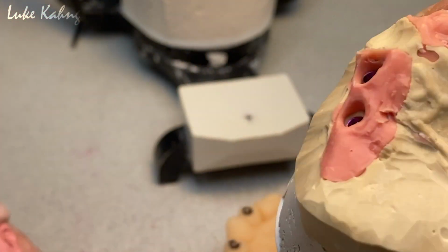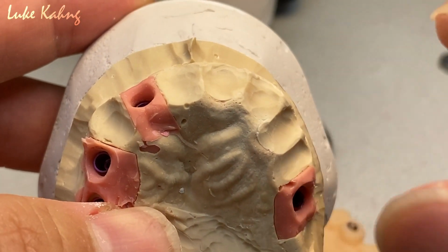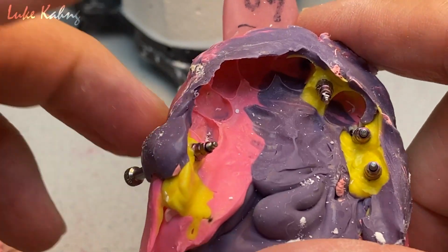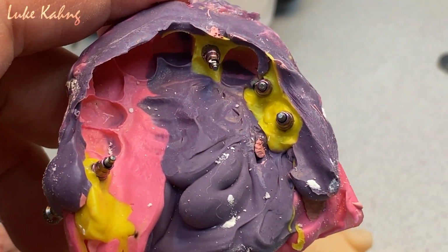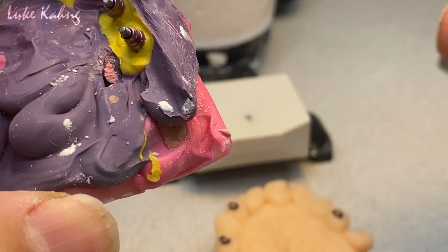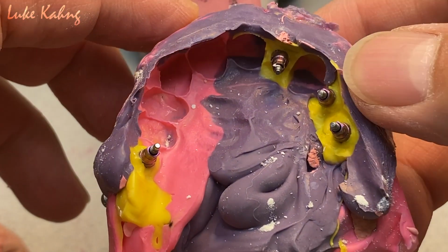Okay, so I'm so glad to help the dentist, who needs help for the final future prosthetics, not only temporary. That's why we made these good temporizations. So we're going to make the custom tray for the doctor, a new custom tray, and then they are going to take the great impression after 3 months, 4 months later.